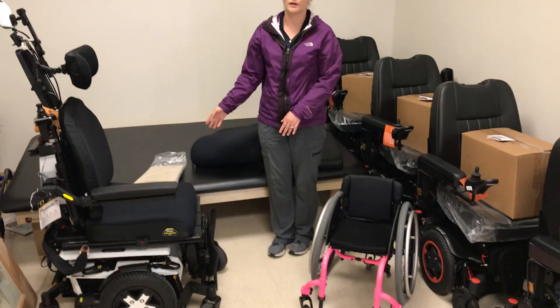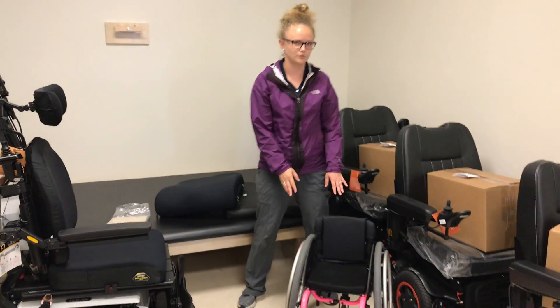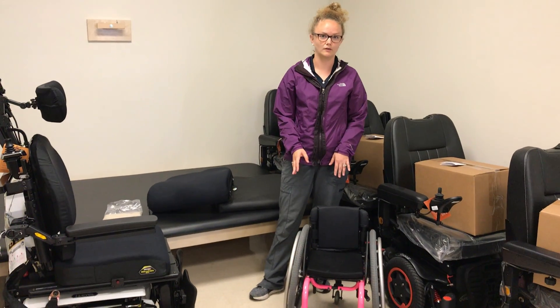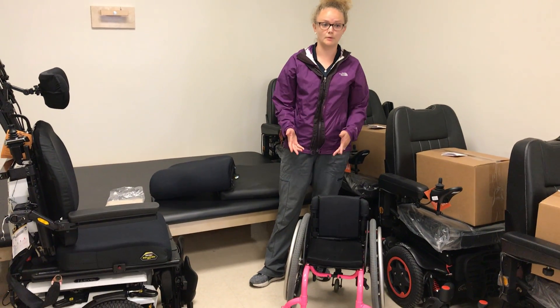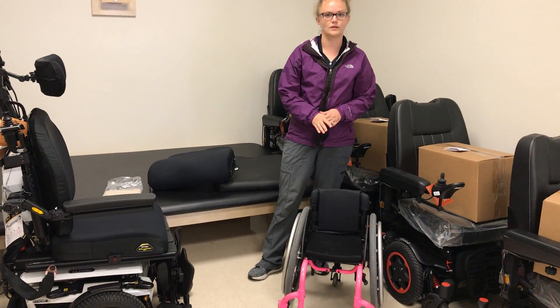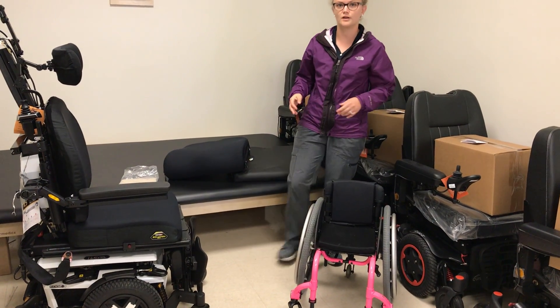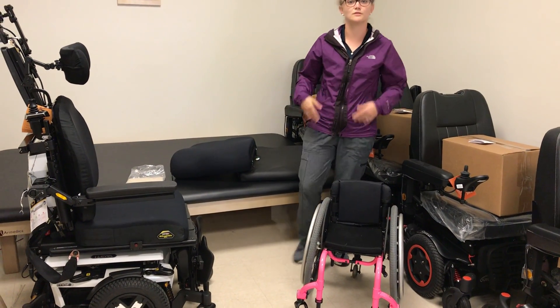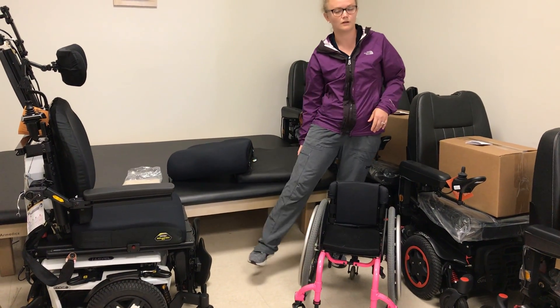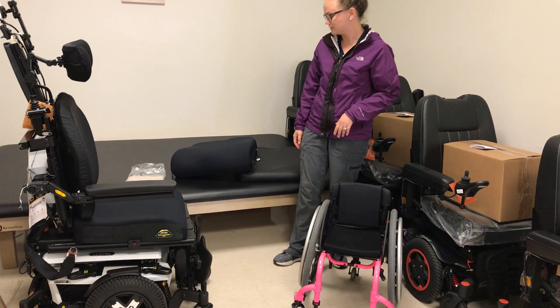Another important aspect to consider, maybe in a manual chair, would be how the user is going to propel. If they're going to propel with their feet, we want to make sure it is low enough so that they can get that proper heel strike, so they can do this all day and not get tired or injure their hamstring or their knees.